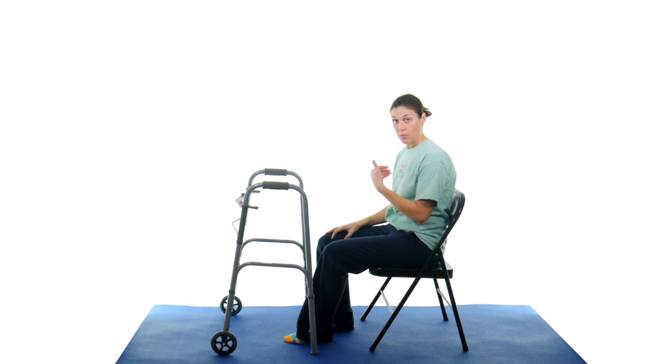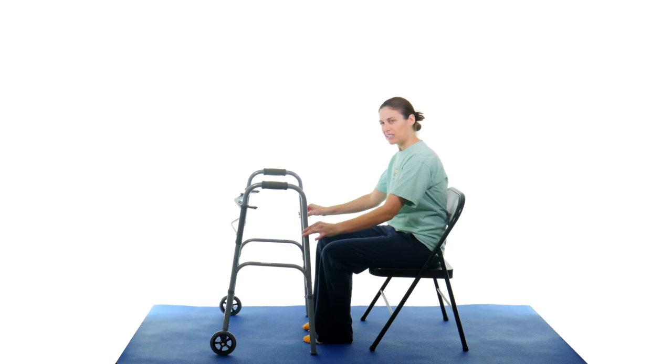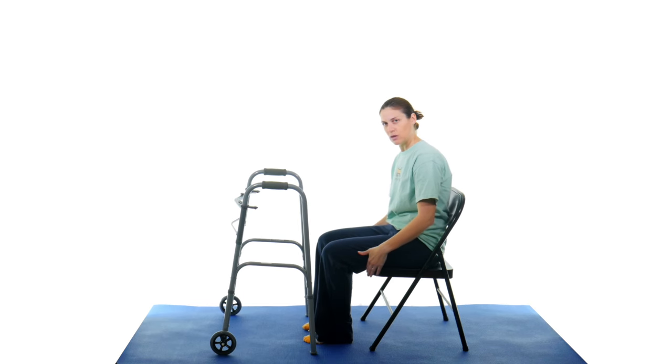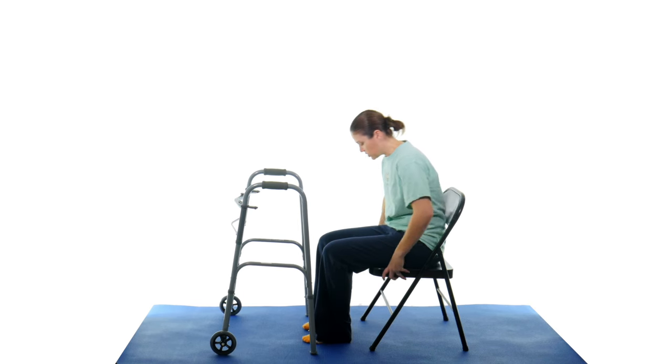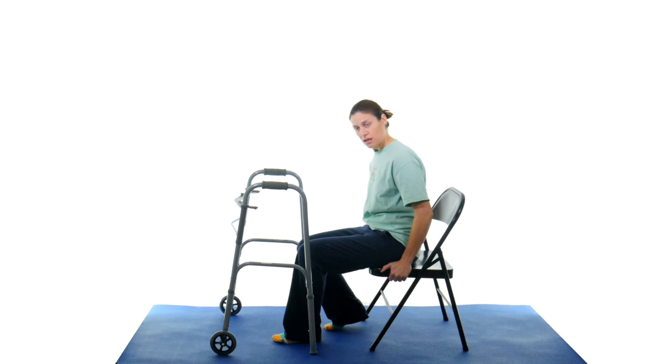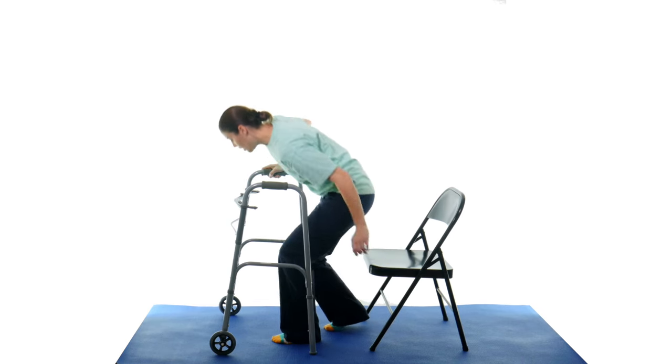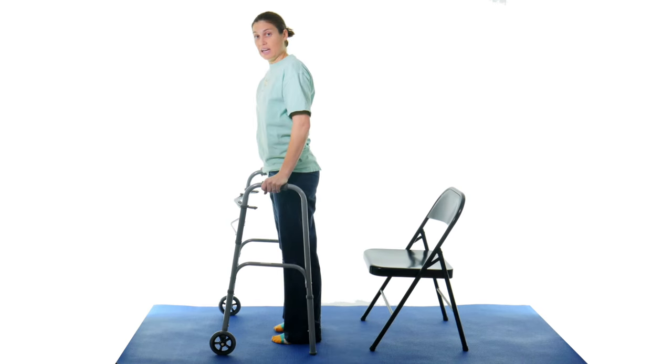So let me go back in one more step. I'm here, my walker's there, it's slightly out in front of me because when I stand up I don't want to be so close to the chair. So I'm going to scoot to the edge, put my strong foot back, put my hand on the seat here, my other hand here on the walker to keep it steady, and then I'm going to push up and then get that other hand here.